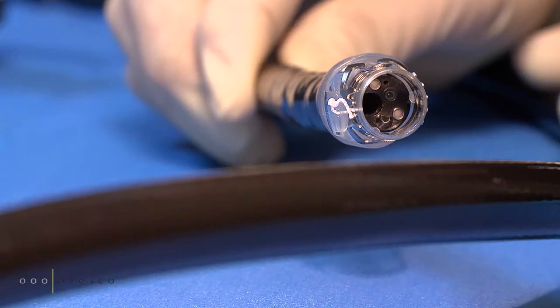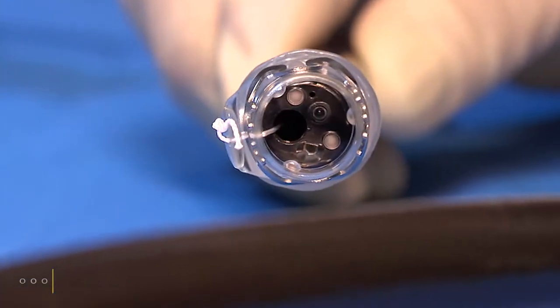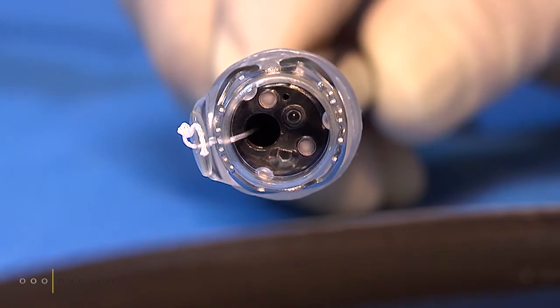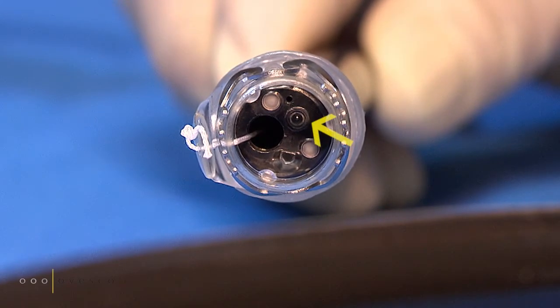Mind the position of the thread while attaching the cap onto the endoscope. The thread must not interfere with the field of vision.